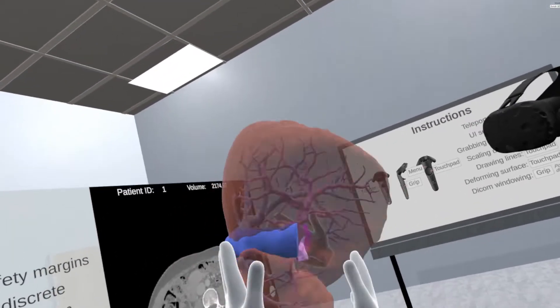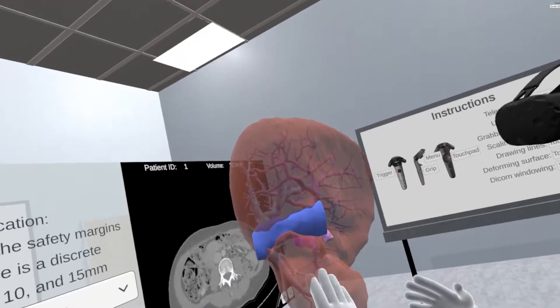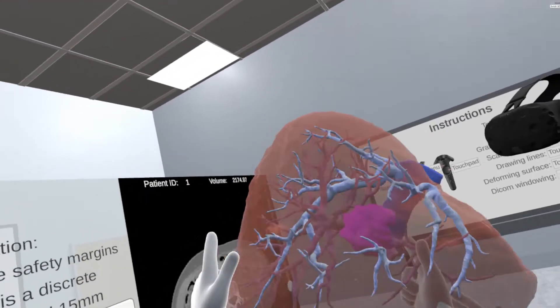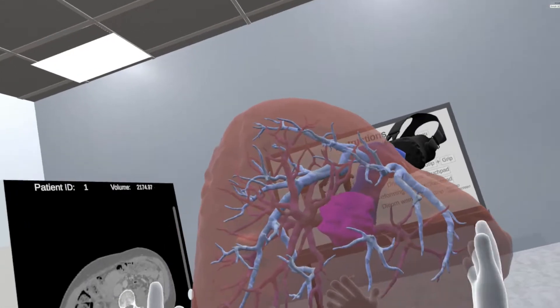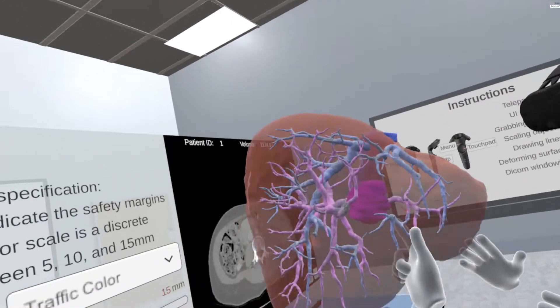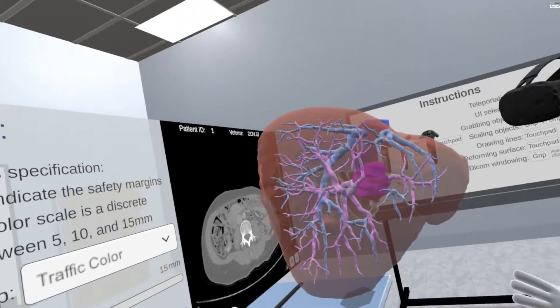We implement intuitive interaction methods to explore the data such that the users can use their VR hands representation. Voice communication is provided and the interactions are synchronized to all the users.